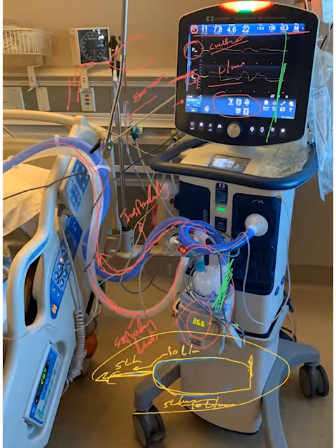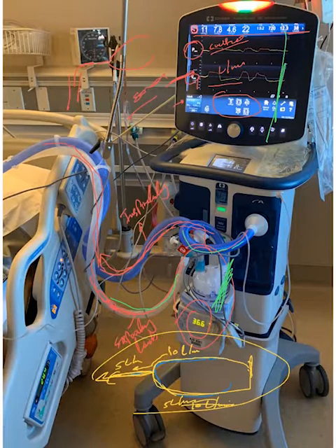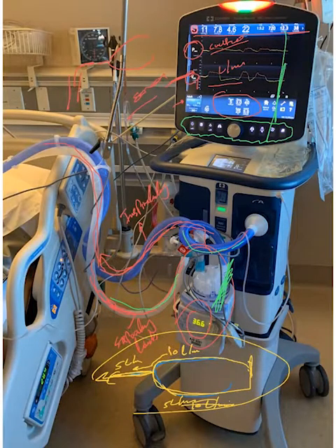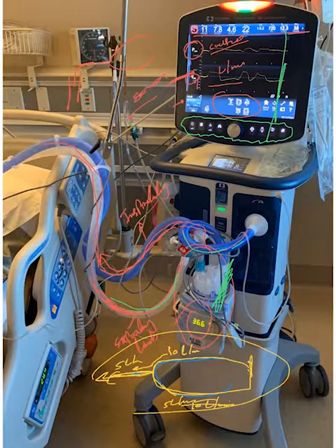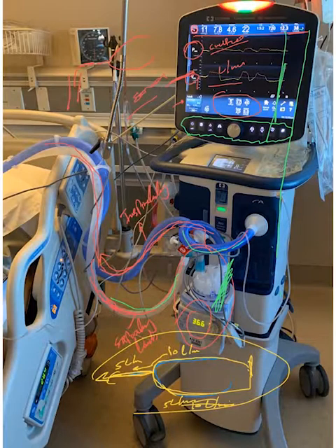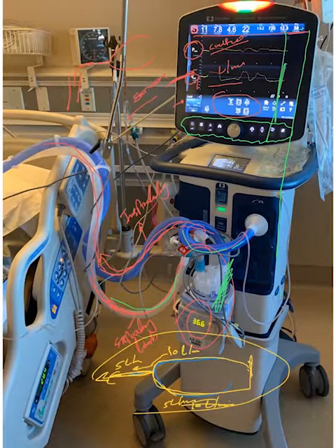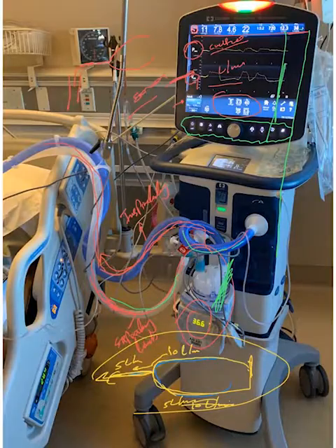The ventilator also has buttons and controls. The way they look may differ from ventilator to ventilator, but the basic functions are the same. Once you know these basics — the screen, humidifier, inspiratory limb, expiratory limb, and settings — you will be able to figure out any ventilator you encounter and set things up pretty quickly.